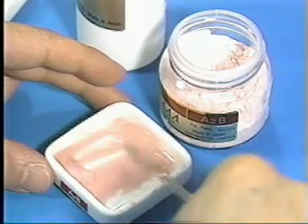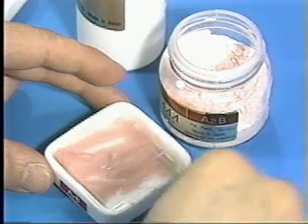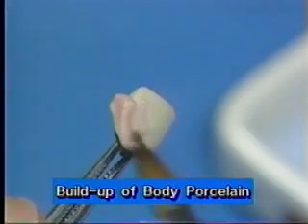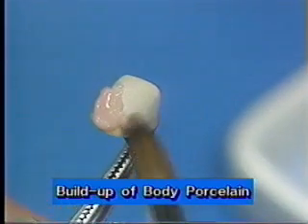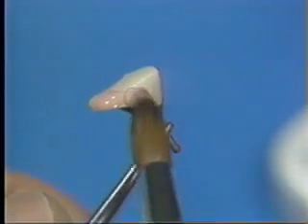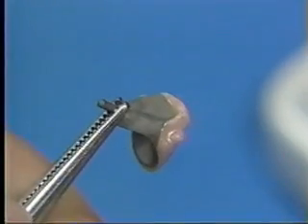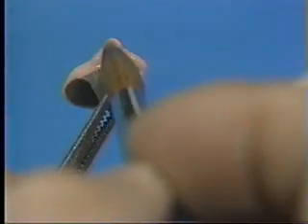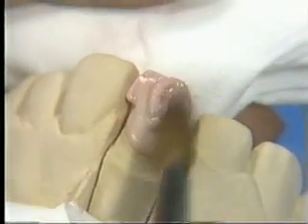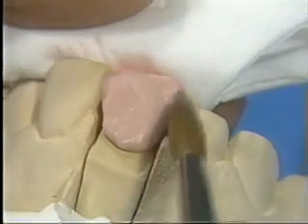Mix the body porcelain with forming liquid. Build up the body porcelain on the cervical and proximal area. Then insert the metal frame into the working die. Build up the same shape and same size as that of the symmetric tooth.